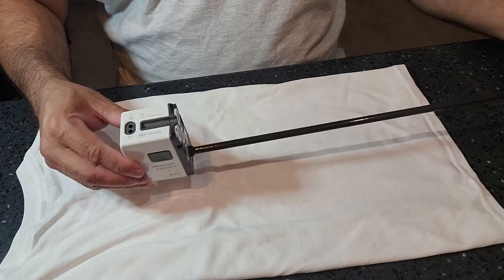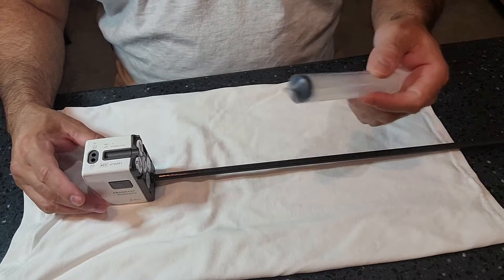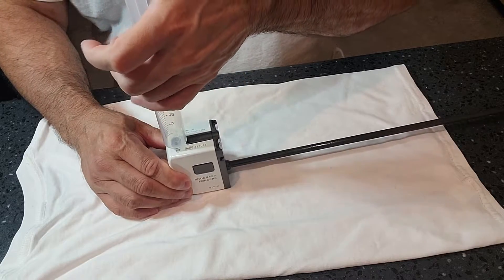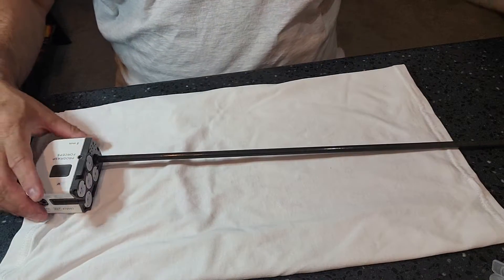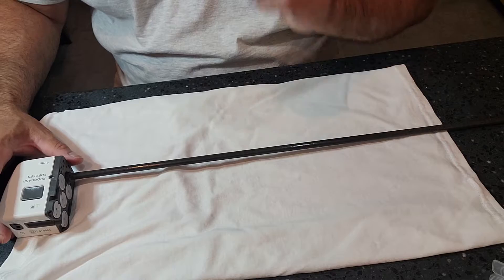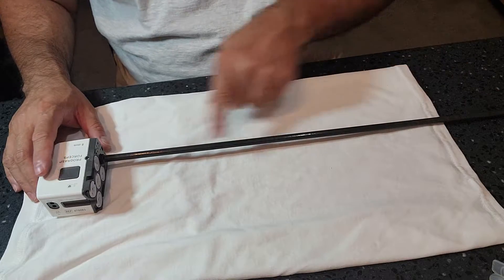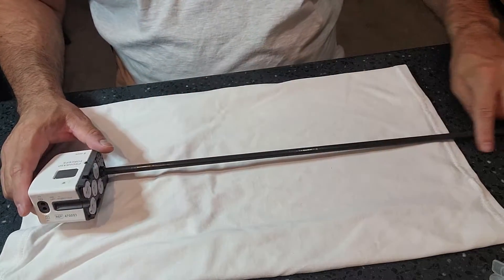There is a priming that you have to do with these robotic arms. It tells you to grab a syringe, and in port number one you want to draw up some enzymatic and put it in port number one, priming it until you see solution come out the other end. You're then going to soak this instrumentation for 30 minutes — that is very vital. 30 minutes, not 30 seconds, not 2 minutes, not 5 minutes. 30 minutes of soak time with the internal lumens, regardless of what the IFU of your enzymatic says.